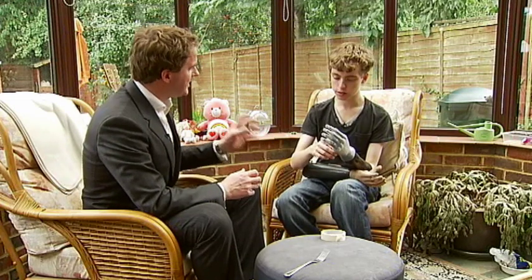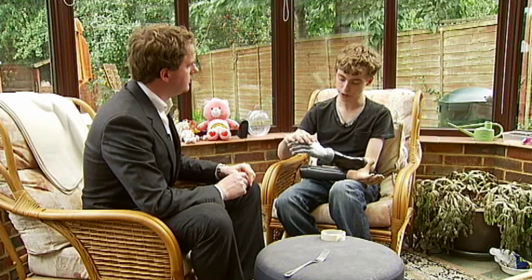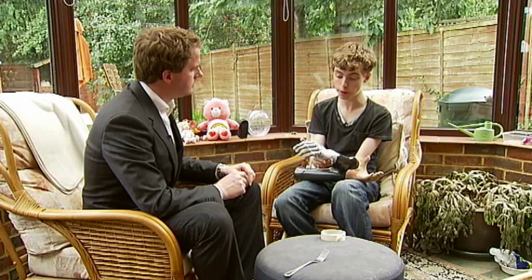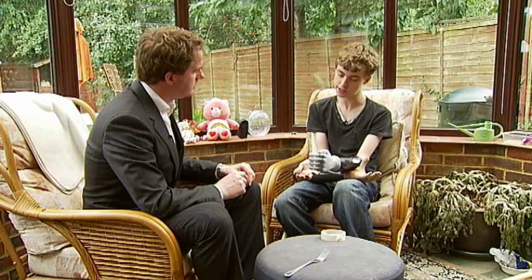So what does that mean for you? How does that change the way you can use it? It just means that I can do 100 more things than I could with this hand. I am able to grip much better. I can grip it in different ways. The thumb also rotates, so I can go from something like this to a fist clench.